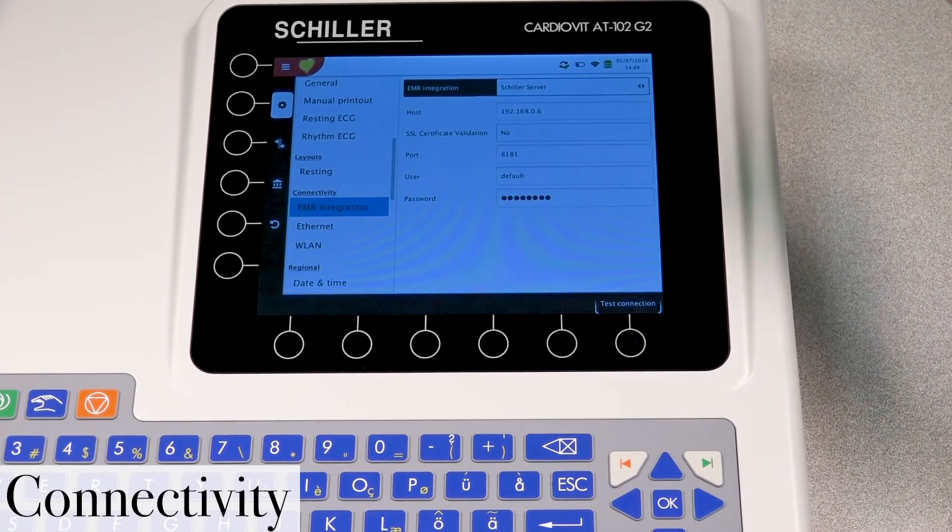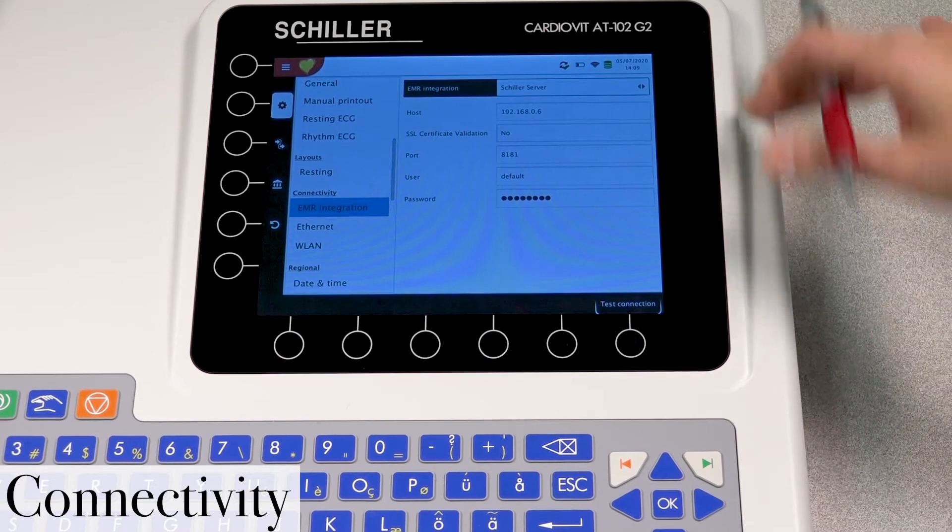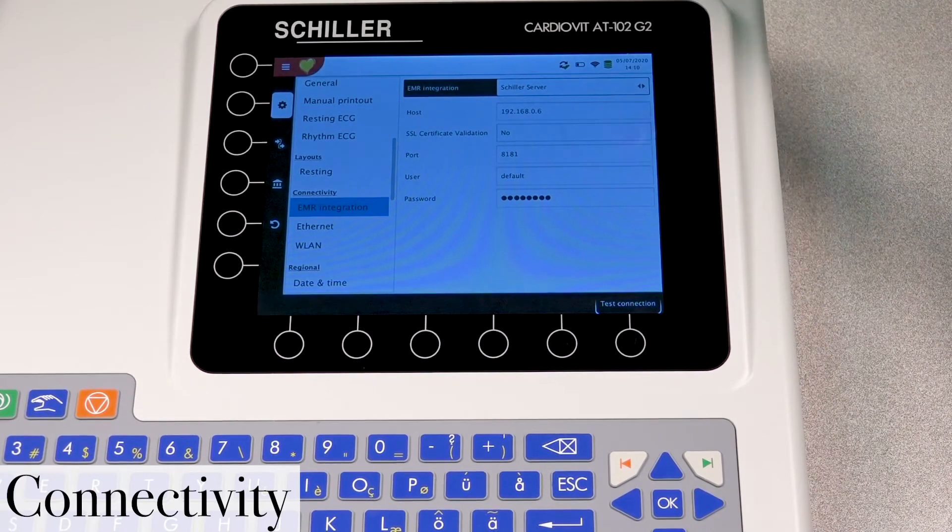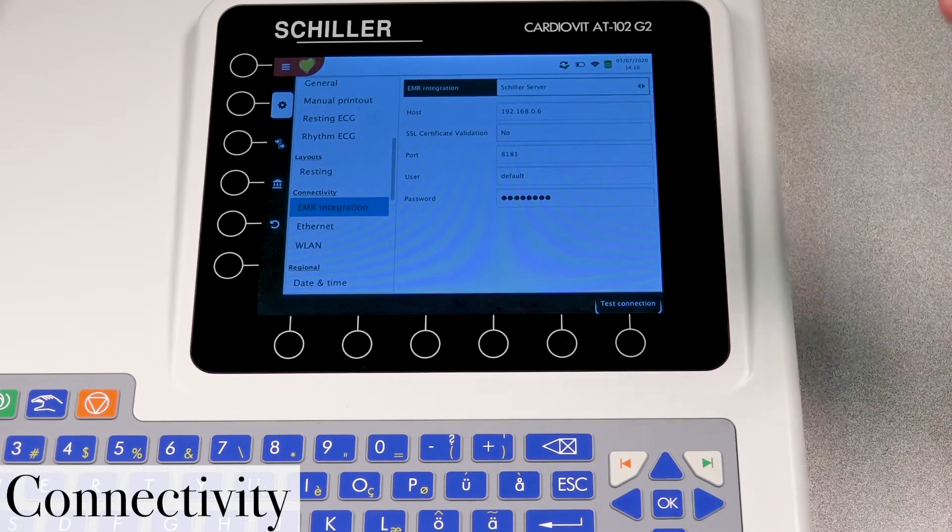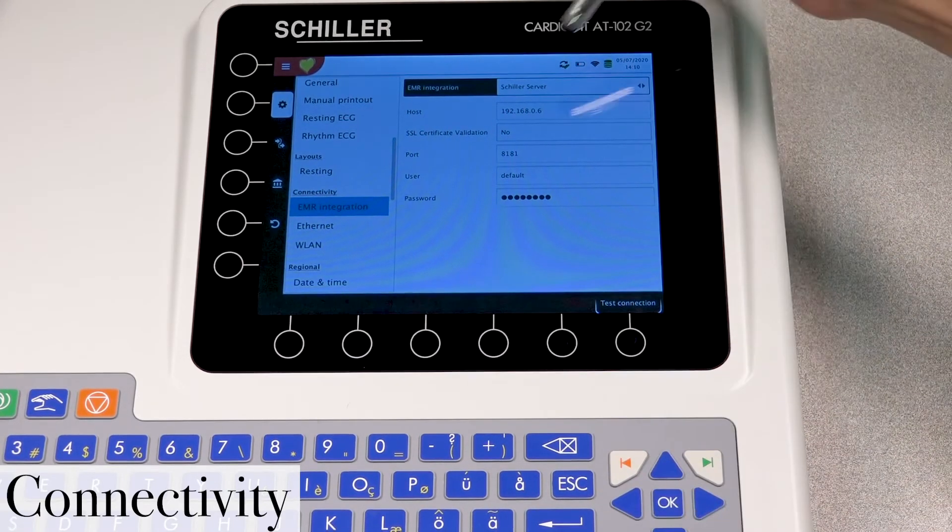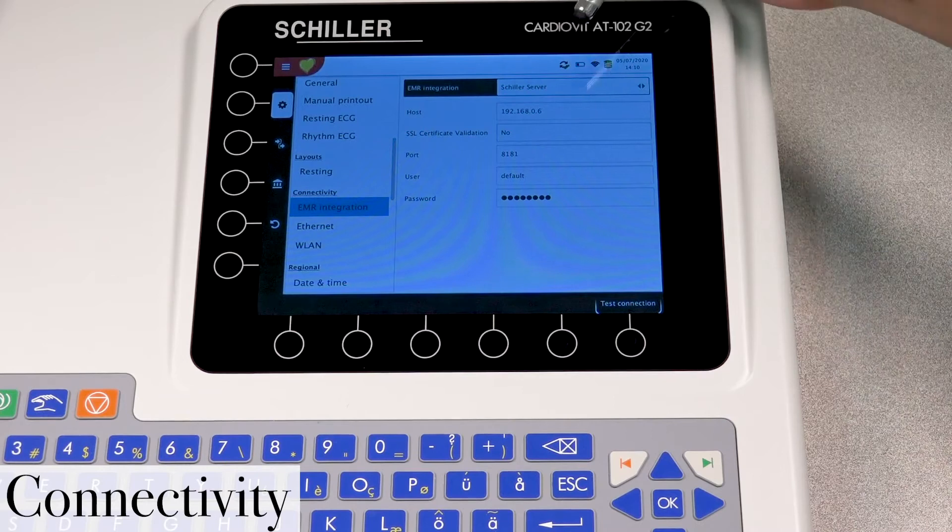So EMR integration, this actually has to, you have to select which software is installed on the customer's end. So in this case, we're selecting Shiller server, as you can already see here.